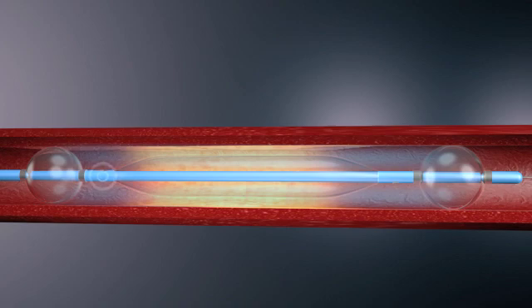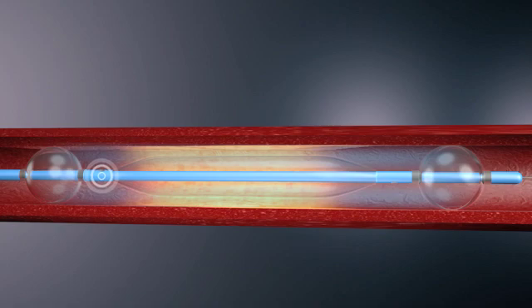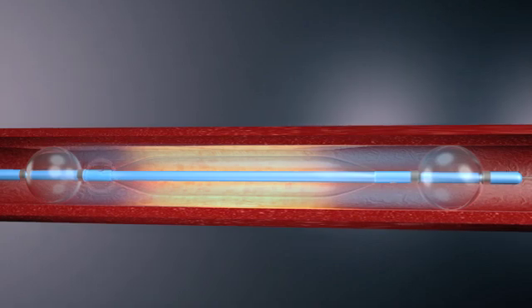The pressure within the chamber is controlled by constant monitoring of the pressure sensor and may be adjusted by infusing additional agent. The space-occupying balloon never touches the vessel wall.